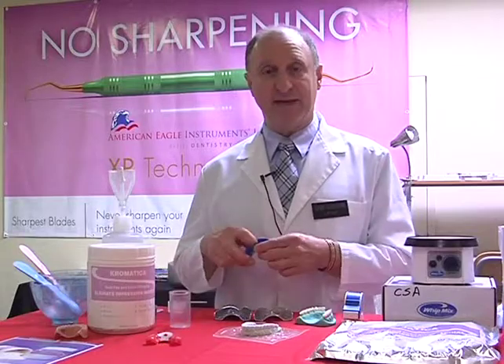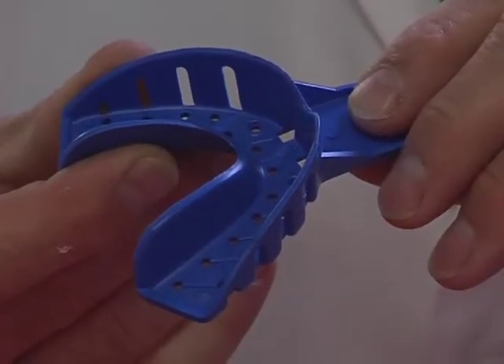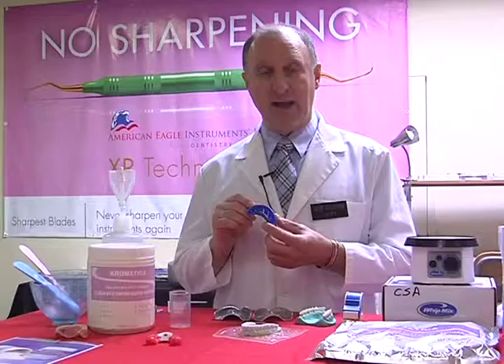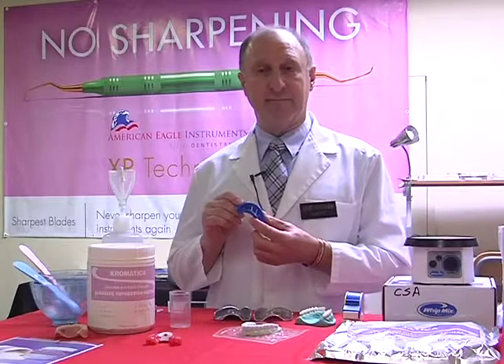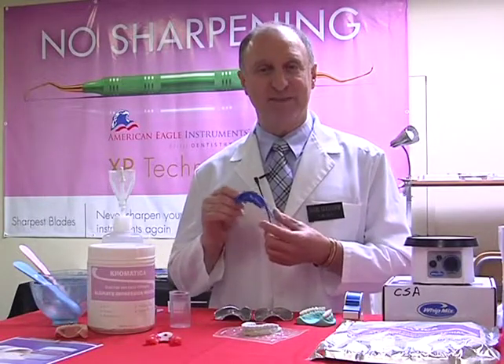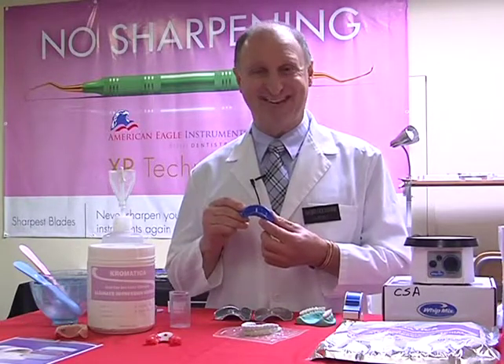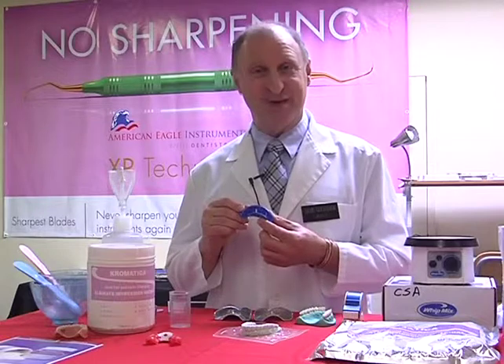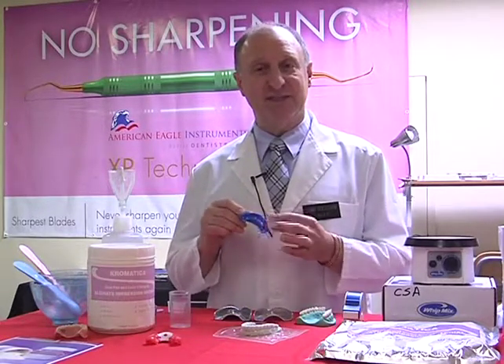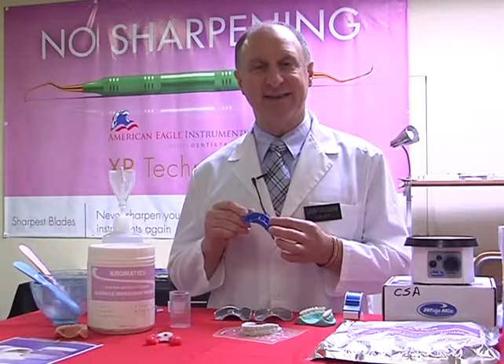Now let's have a quick look at our plastic trays, and these are considered disposable. They come in this case as a half arch, of course, and full impression trays. The difference between these is I go into a lot of dental offices and I see what's happening. They actually put these into a cold soak solution overnight, whereas they're considered disposable. Disposable means you throw it away after each use. The problem being that since it's a plastic, a shiny surface almost, they don't get quite the adhesion that you normally need.